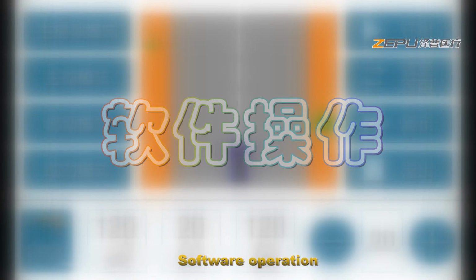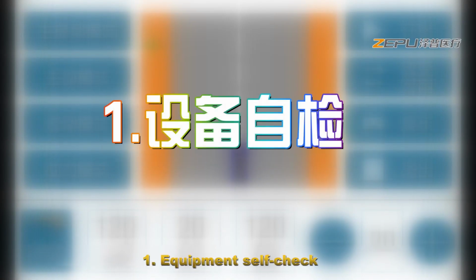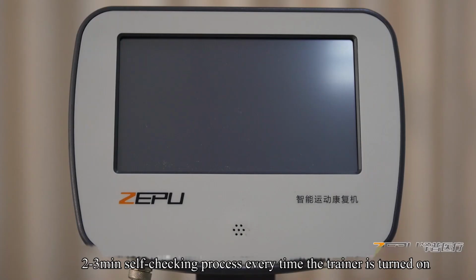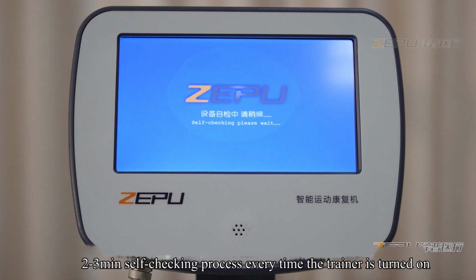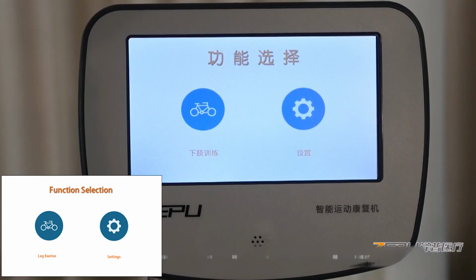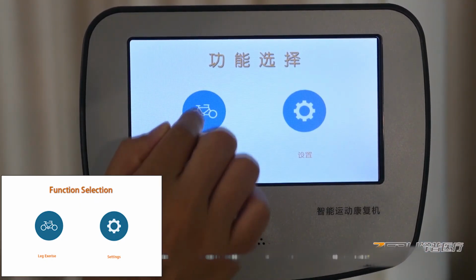Software operation. One, equipment self-check. To ensure the safety of the trainer, every time it is turned on, the trainer performs a self-checking process of 2 to 3 minutes. Two, enter the training interface. Click on lower limb training on the basic interface to enter the training interface.